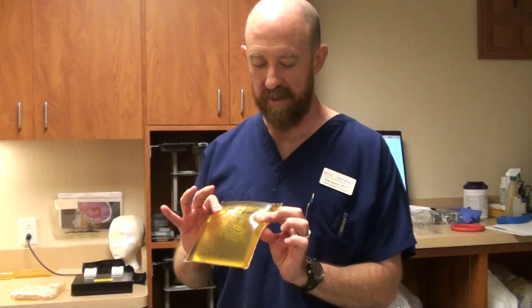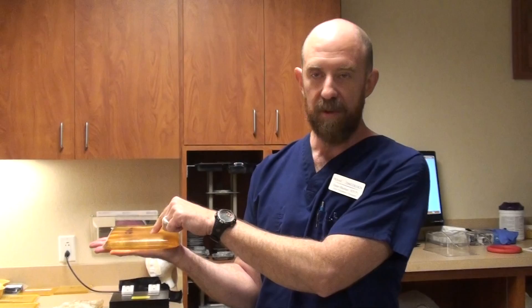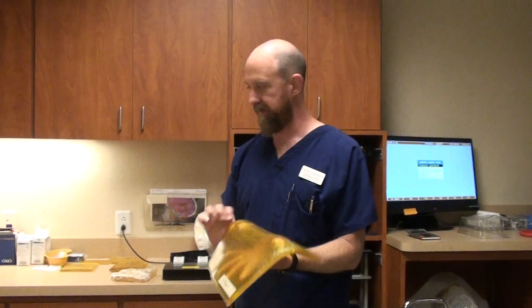Bolus is tissue equivalent material — it's like gel. This is a two centimeter thick bolus. It's placed on the patient's skin surface and you treat through it. What this does is basically tricks the radiation into thinking the patient is thicker than they really are. Radiation will go a specific depth into the patient's body, and when you have bolus on top of the treatment area, the radiation begins interacting with the bolus before reaching the patient — so anything that would be treated relatively deep in tissue will now be a little more shallow. It comes in all kinds of shapes, sizes, and thicknesses.